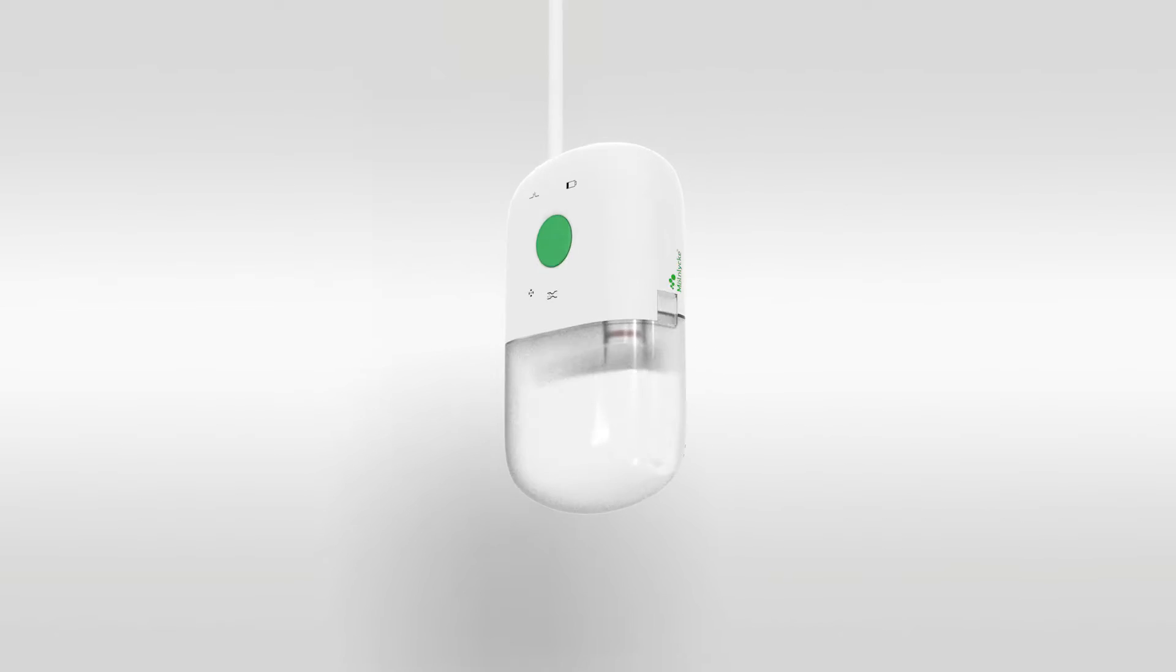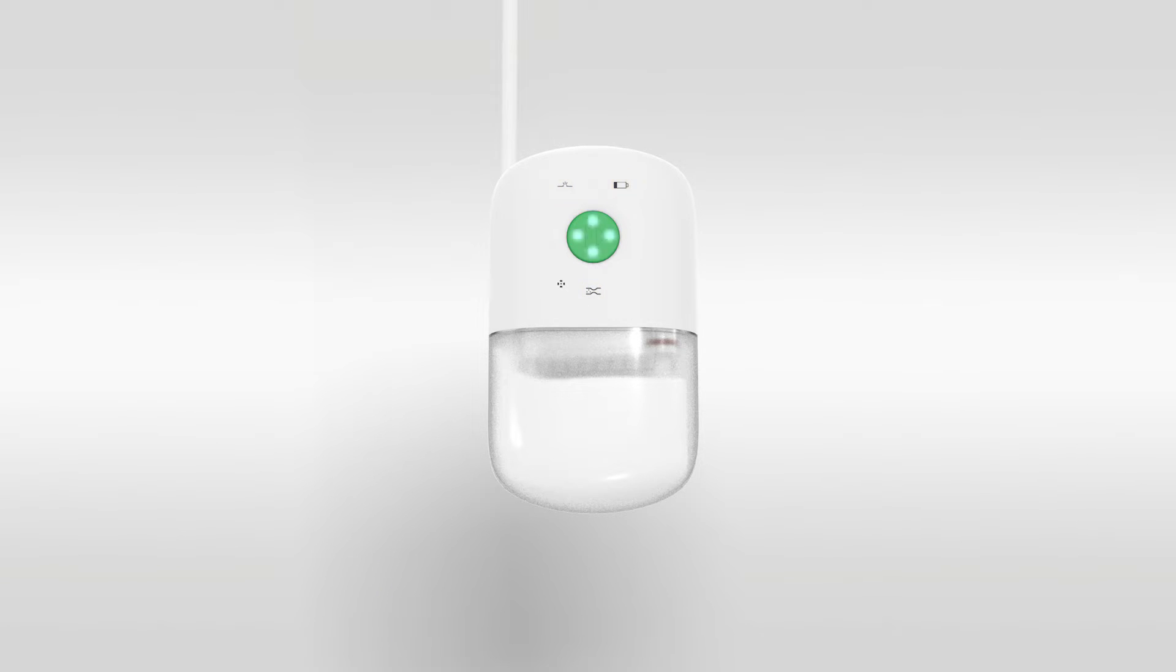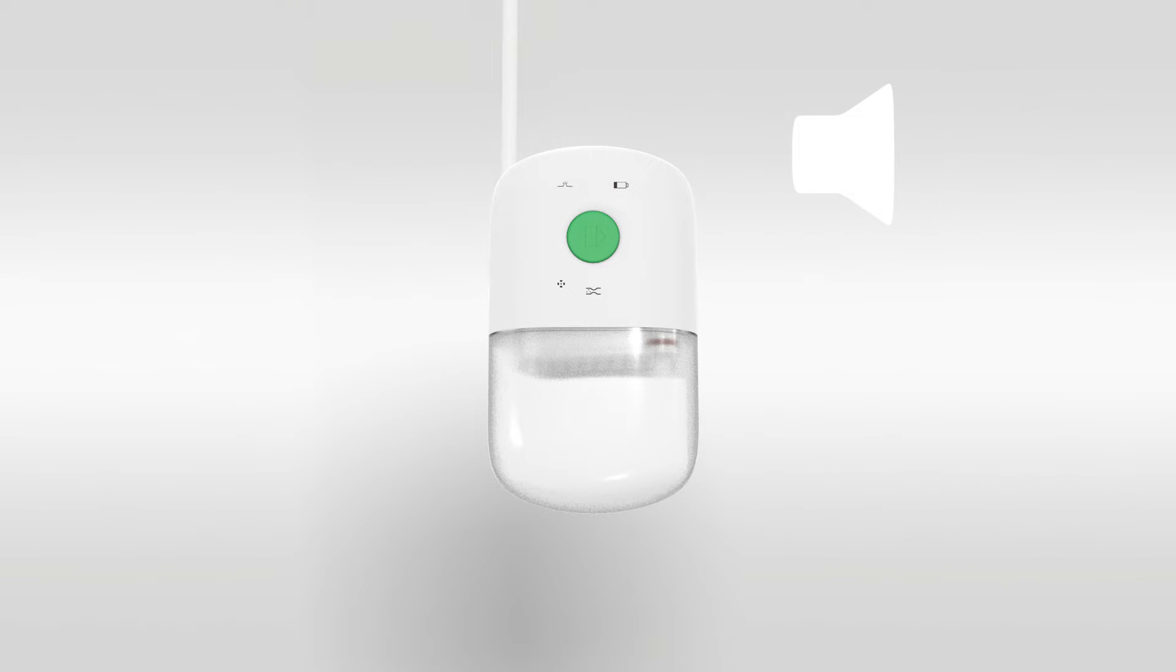In self-test mode, the pump activates for a short period. All light indicators flash in turn and the pump will emit audible notifications, first in a medium frequency, followed by high frequency. This completes the self-test. After self-test is completed, the pump will remain paused until started.